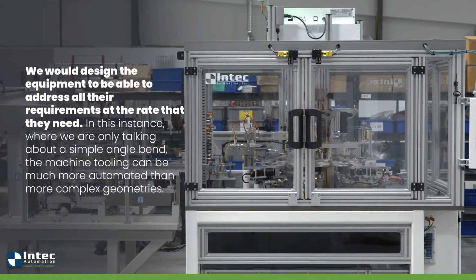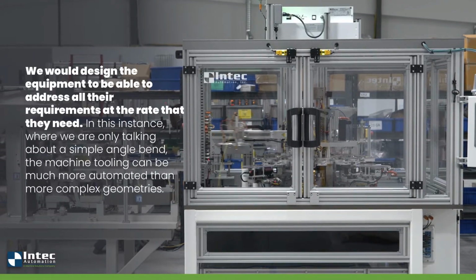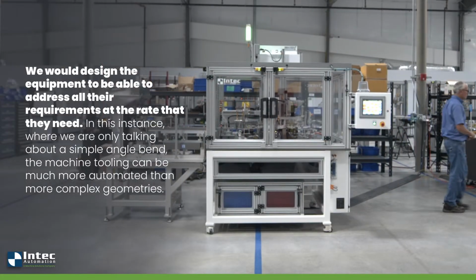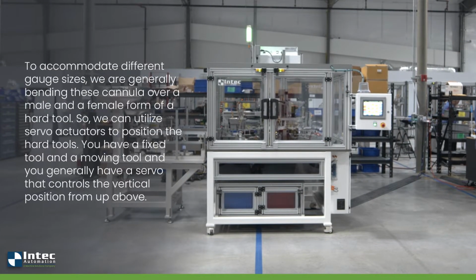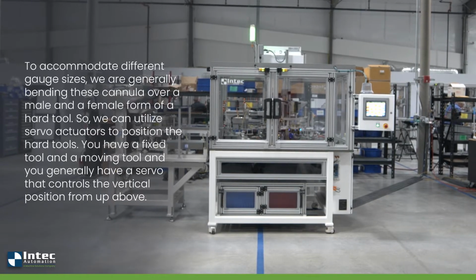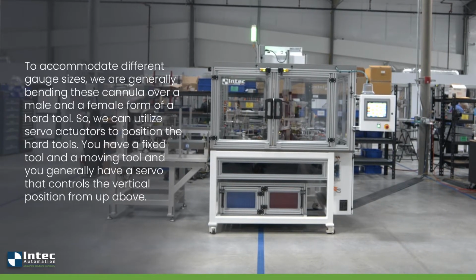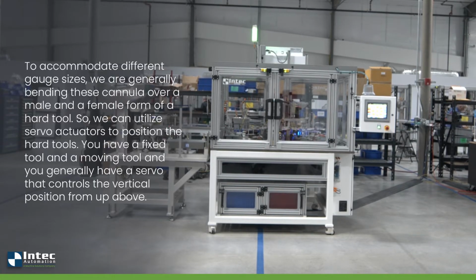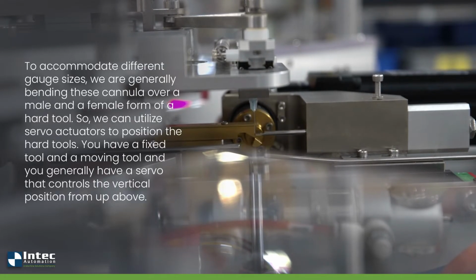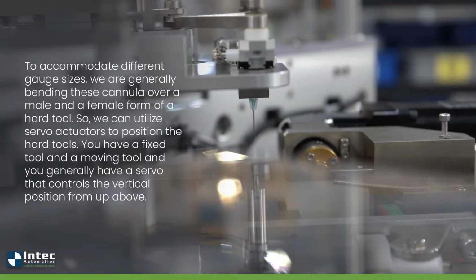And we would design the equipment to be able to address all of their requirements at the rate that they need. In this instance, where we're only talking about a simple angle bend, the machine tooling can be much more automated than more complex geometries. So, for example, to accommodate different gauge sizes, we're generally bending these cannula over a male and a female form of a hard tool.